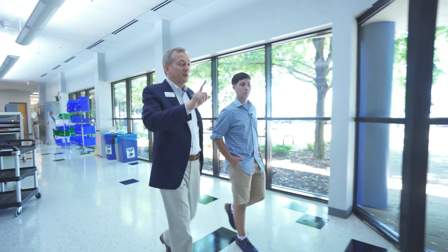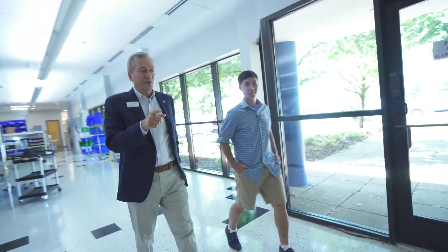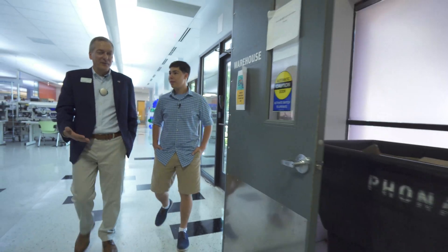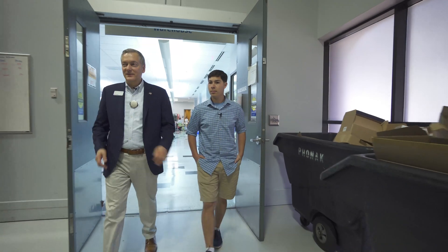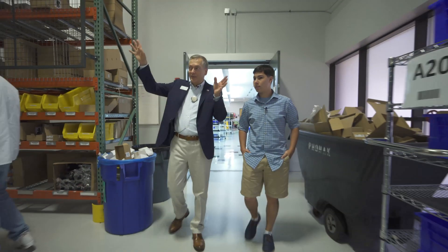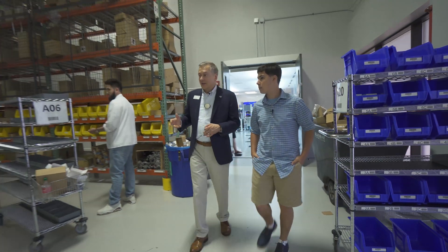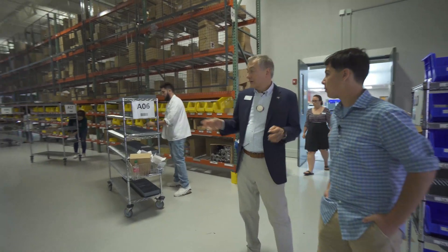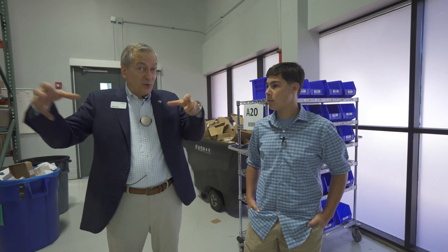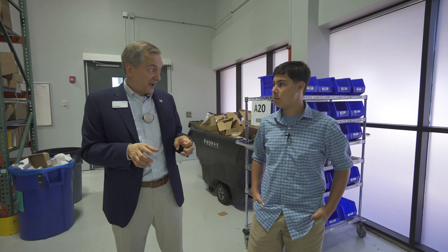This is the first place we've come through where something's been locked away. The reason is that in here you can see all around you — this is where we keep all the parts, pieces, and finished goods: finished hearing aids, accessory items, and most of what we've taken in from our other factory.